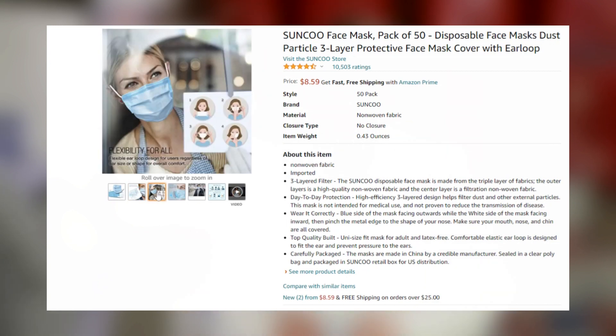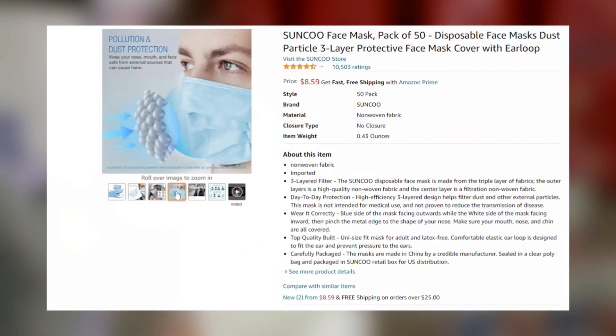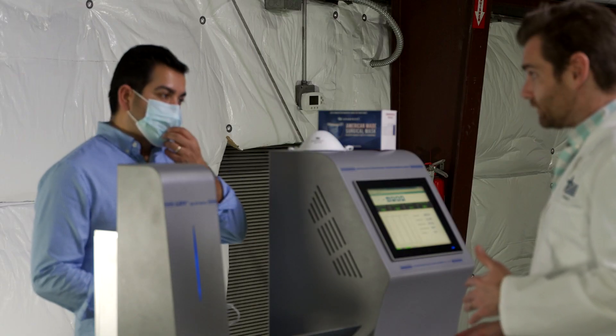This is very affordable — it might be one of the cheapest masks we've seen at $8.59. We can't be too critical when something comes in that low. The melt-blown alone that would give a BFE or PFE of 95% would cost probably about three bucks, so that's most of the cost of this mask right there.